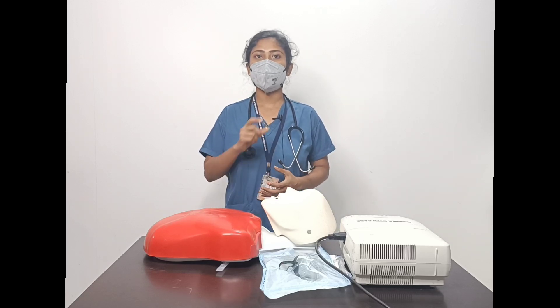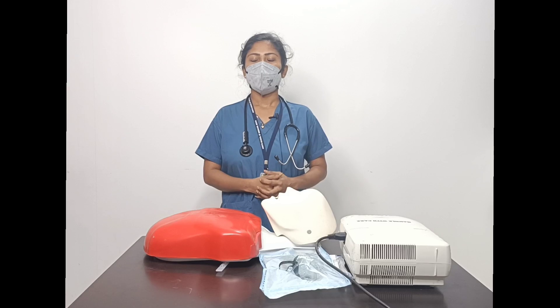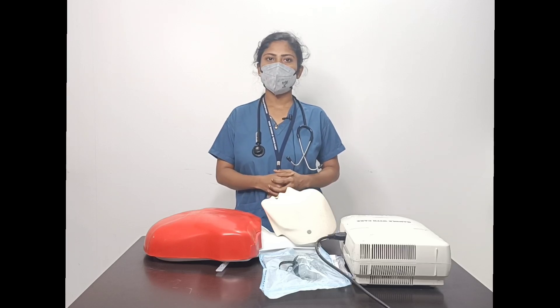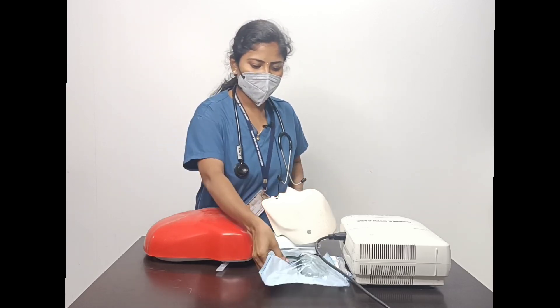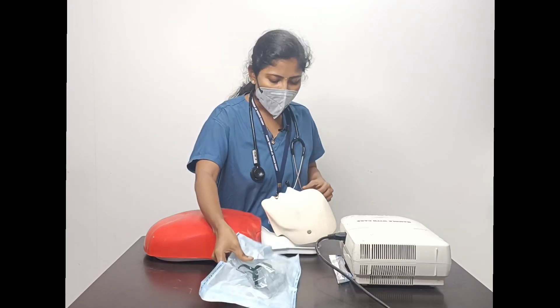Before discussing the equipment, we should know the definition of a nebulizer. A nebulizer is a device used to convert liquid medication into tiny droplets of mist that are directly inhaled into the lungs. This is known as a nebulizer.